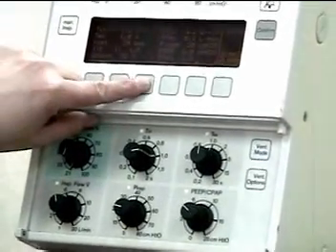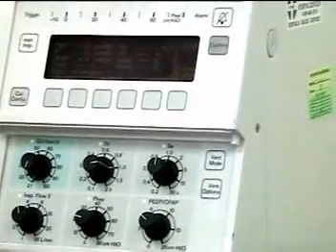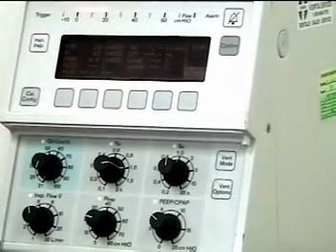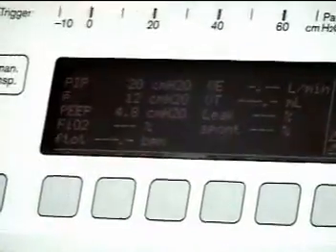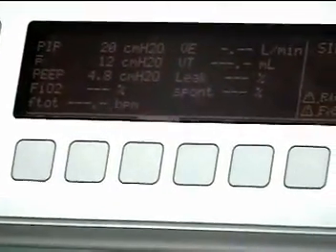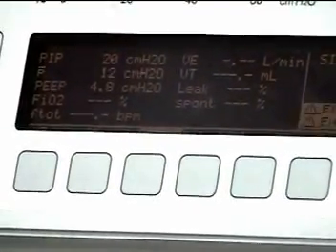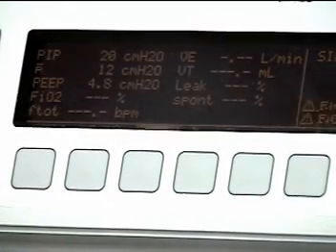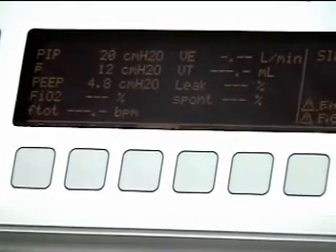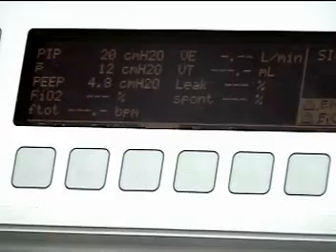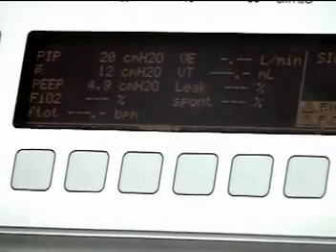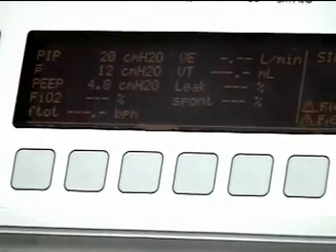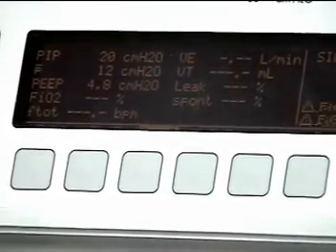Once we have set those, we can go to the measure mode, and that will tell me what is actually being measured at the moment. It will tell me the exact PEEP value, the exact inspiratory pressure, and then a mean airway pressure as well. On this ventilator, mean airway pressure is denoted by the abbreviations large P, small a, W.